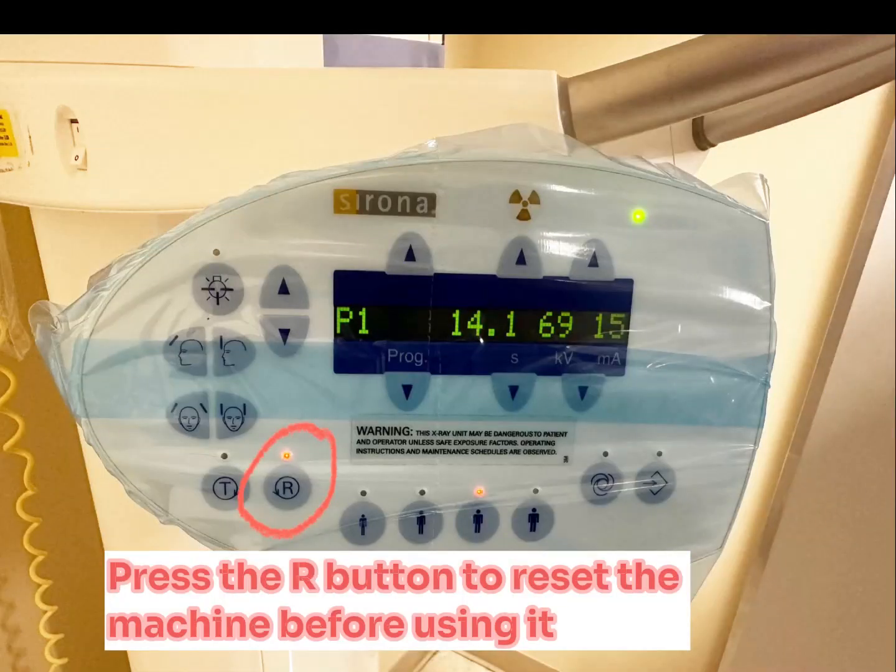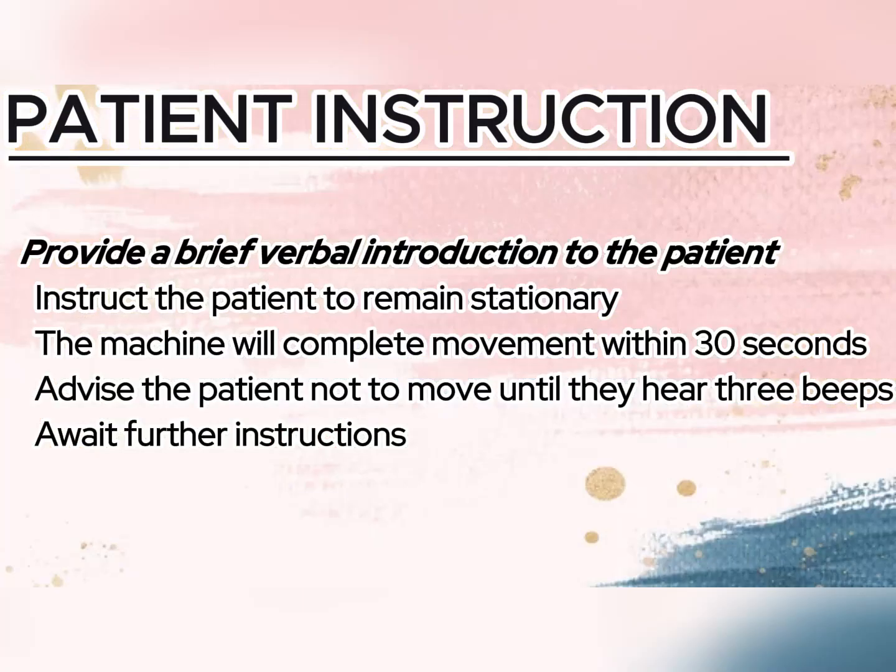It is important that equipment preparation is completed before preparing the patient for exposure. To begin, ensure the R button on the control panel is checked for any blinking. If it is blinking, follow the manufacturer's instructions to press it in order to reset the machine before use.